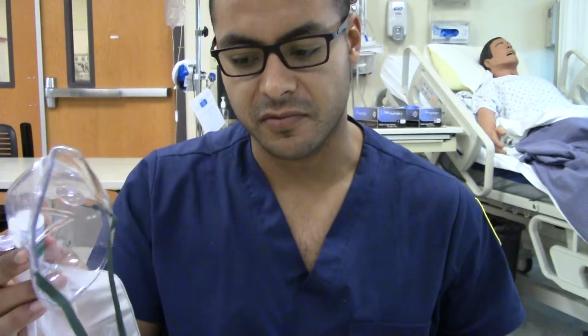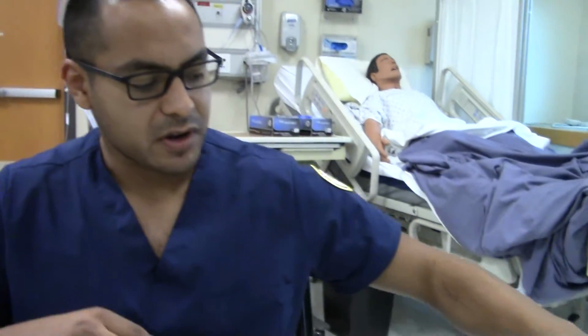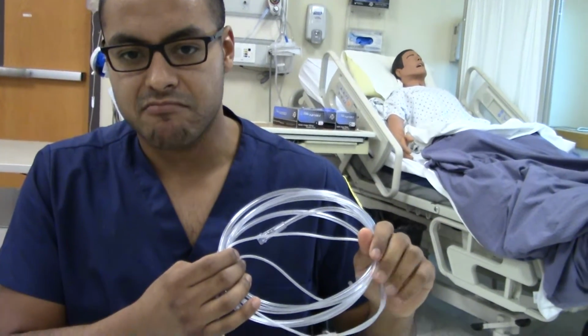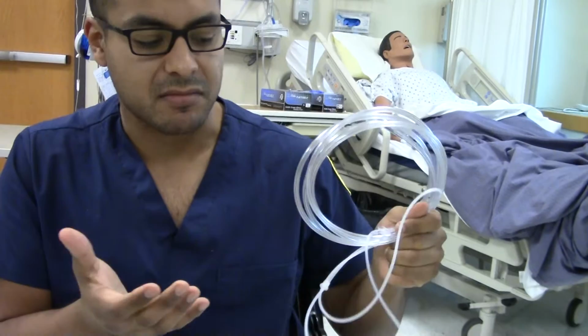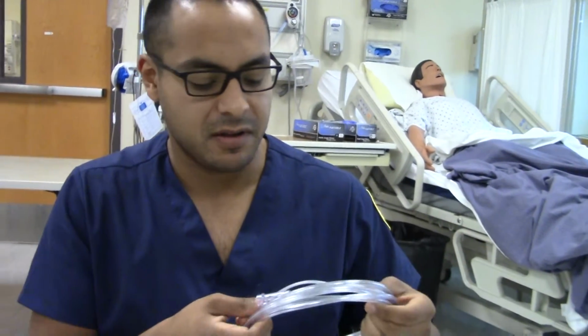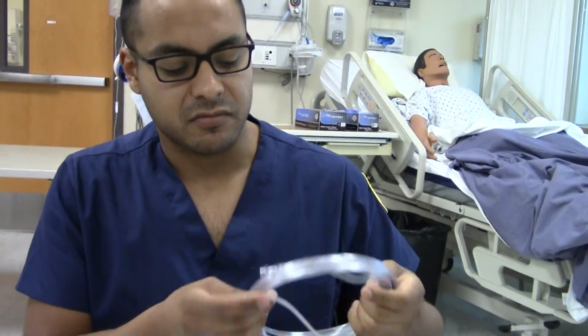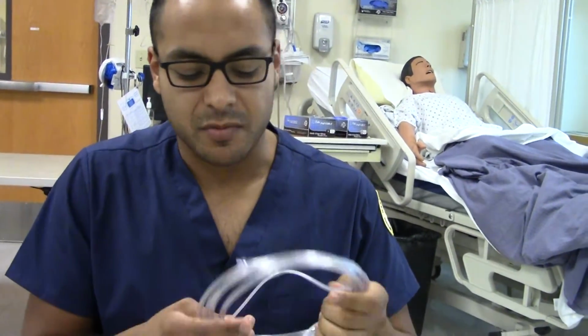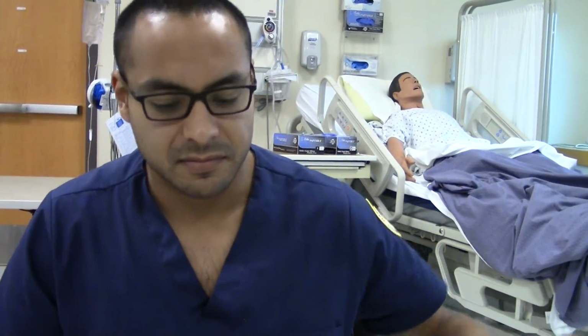Short-term therapy also. Real quick, for this one, if the patient decides to breathe through their mouth, the FiO2, I mean, it kind of defeats the purpose because they're taking in atmospheric air. So what, 21%, right? When they breathe through the mouth, they're breathing in the room air. So, I mean, it makes the purpose of using this kind of meaningless.